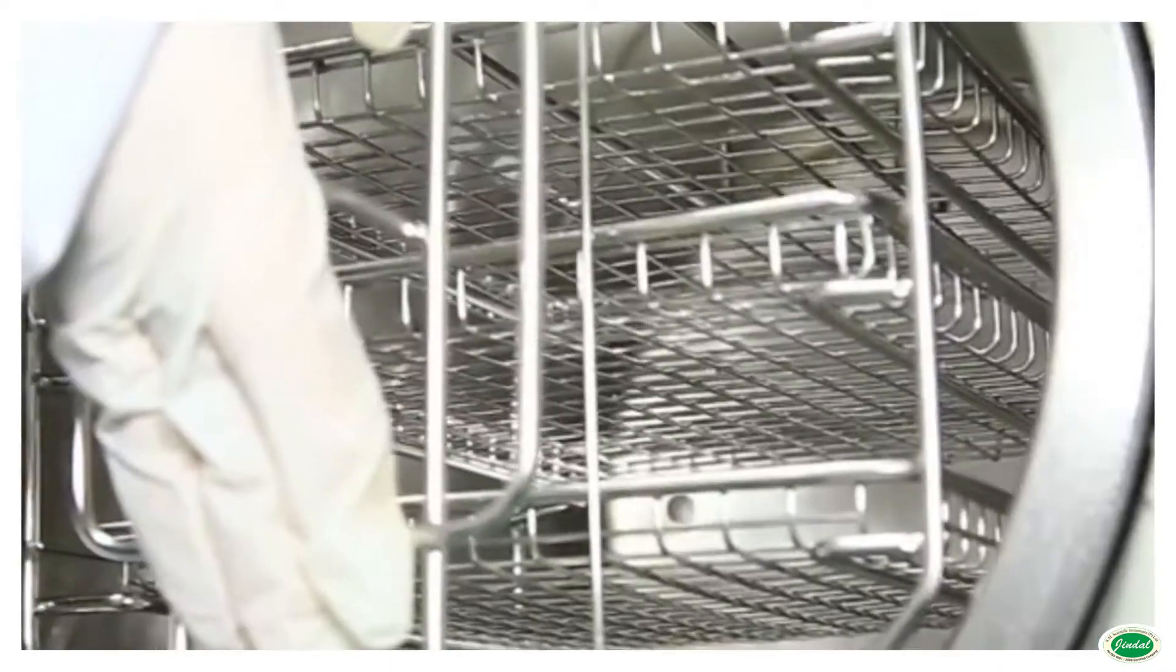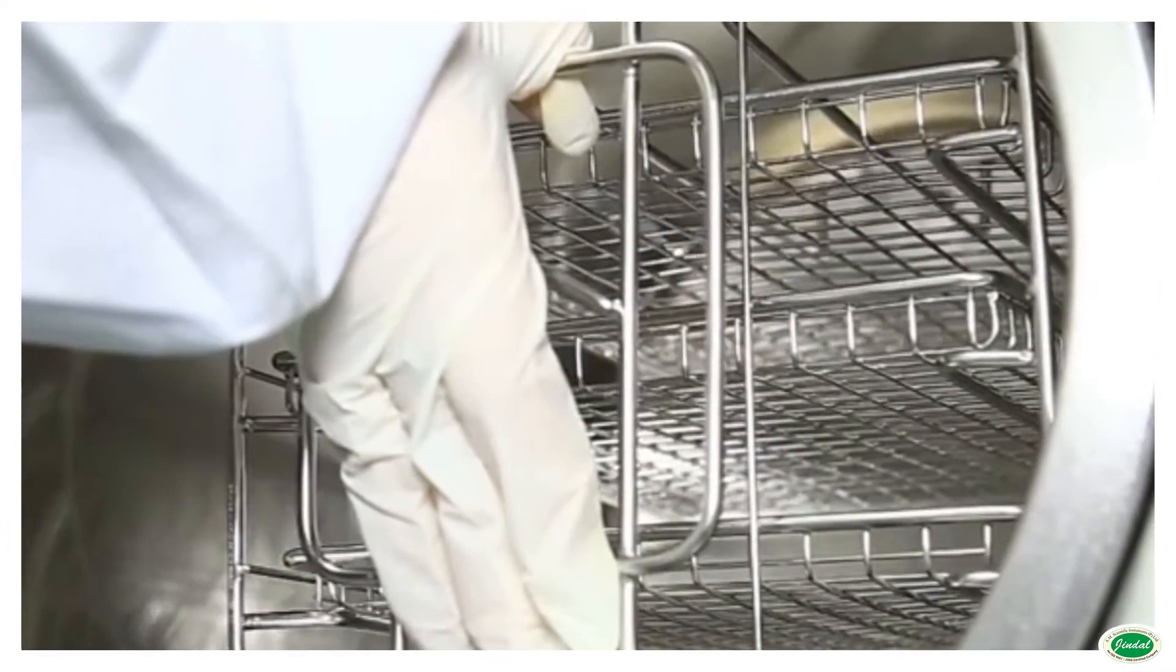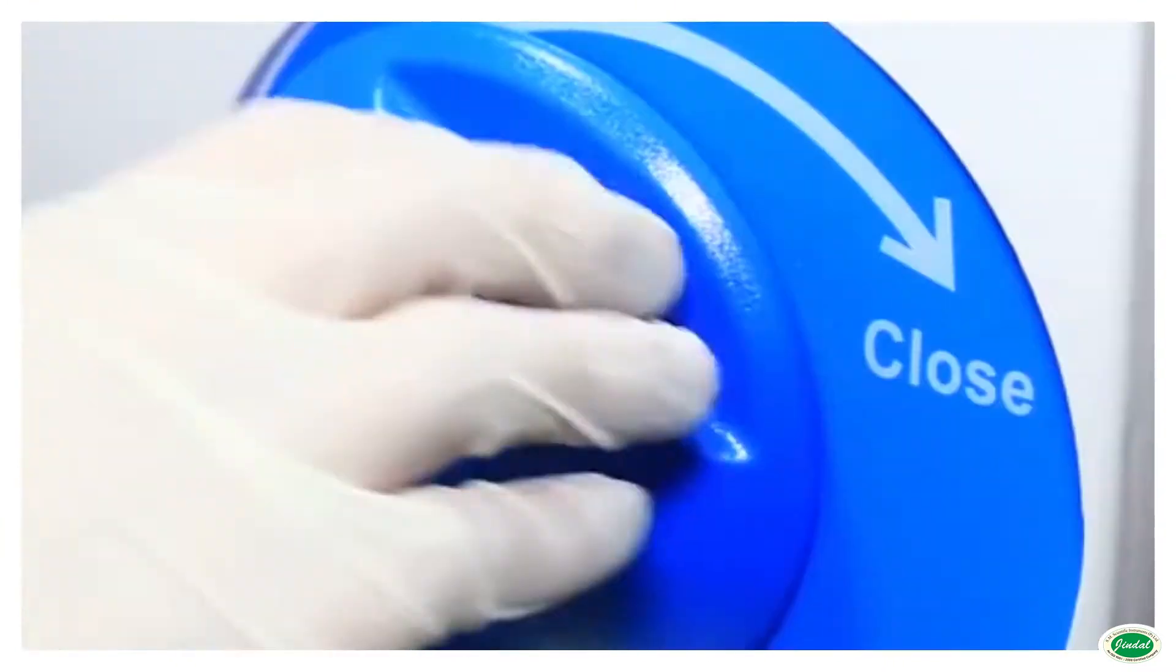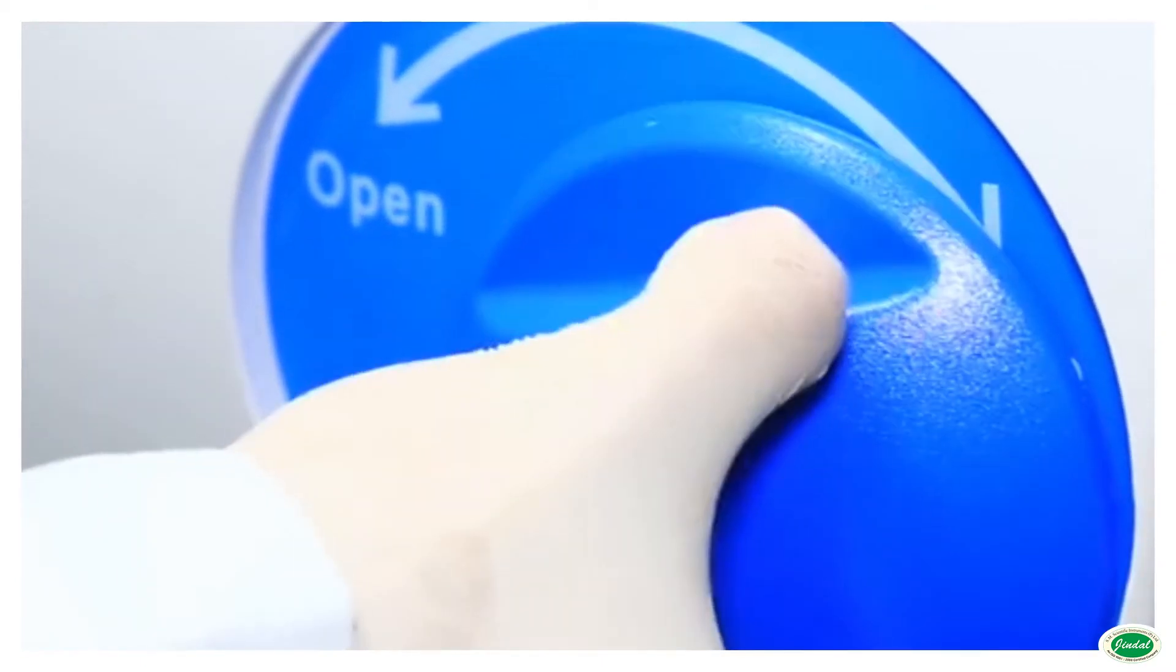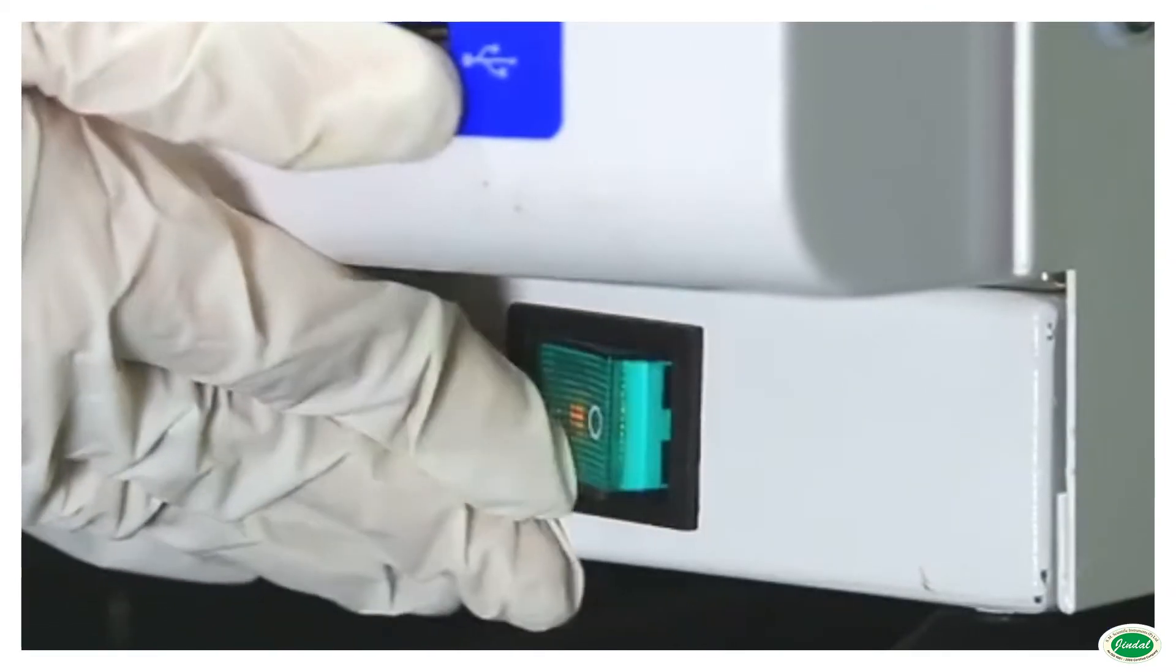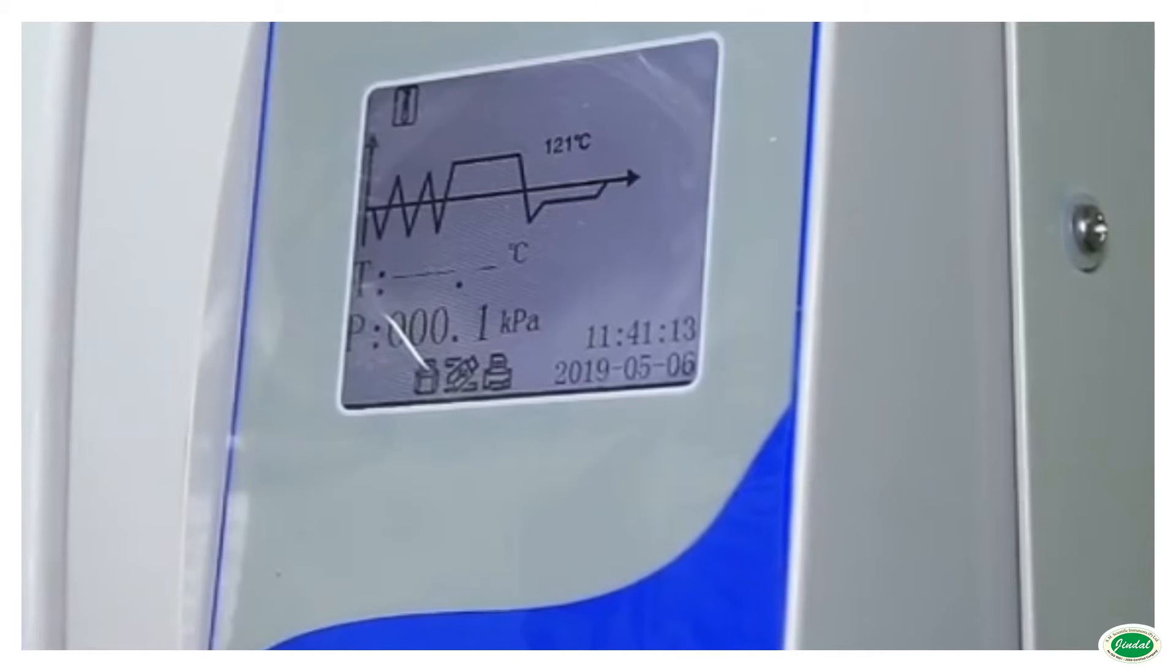The chamber, shell, lid and other parts are made of high-grade SS304 stainless steel. The sterilizer uses easy clean open type water tank which can support repeated cycle running when fully filled.